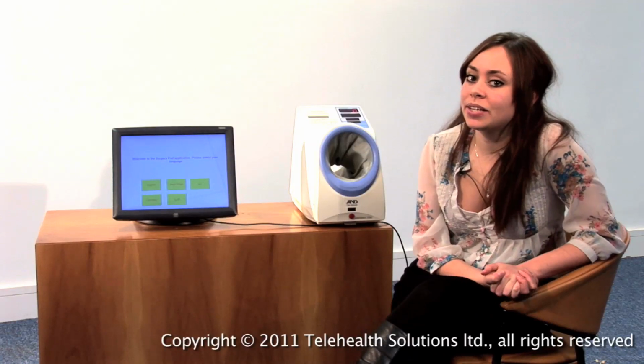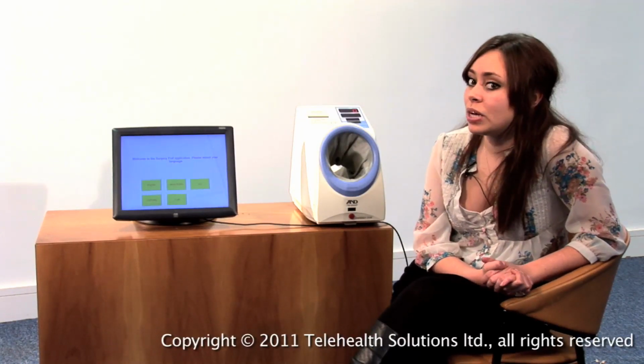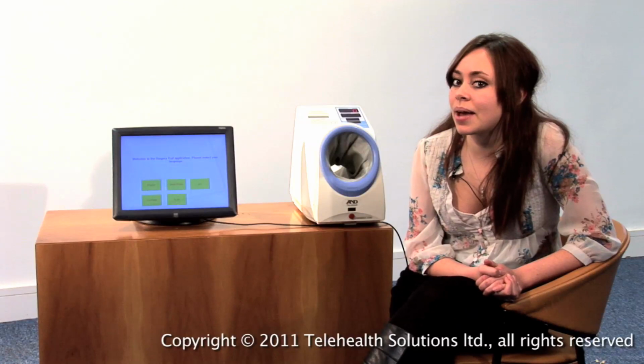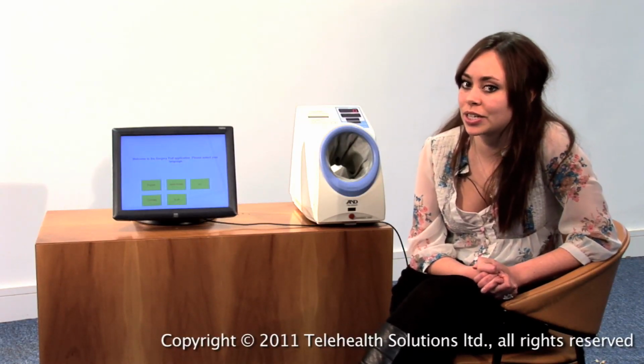So I'm going to be taking you through the surgery pod, which can either sit in the GP's waiting room or in a private consultation room, depending on the surgery. What it allows a patient to do is take a range of tests from BP and BMI, so the general health checks, to more in-depth clinical questionnaires, such as Audit C and PHQ-9 depression.